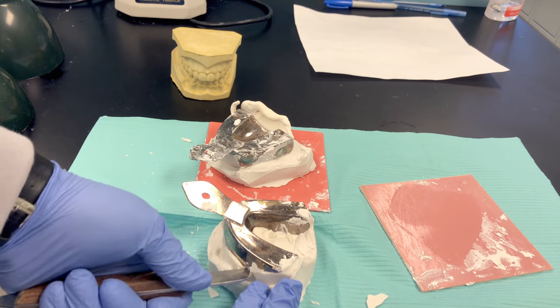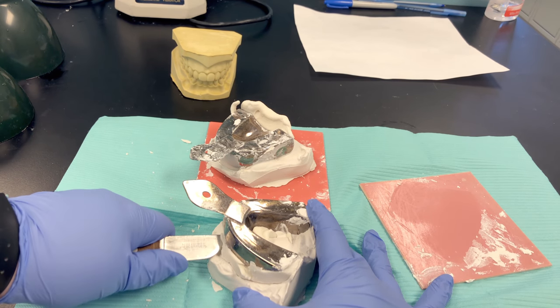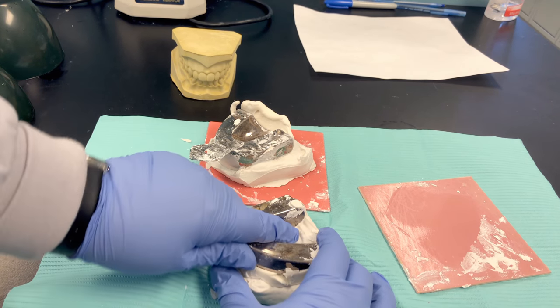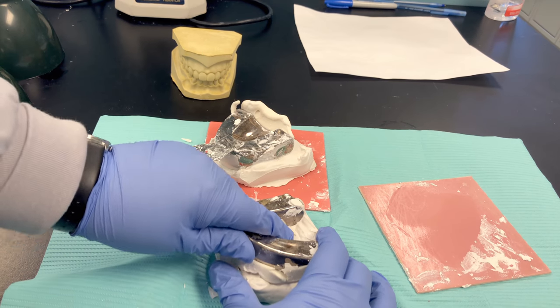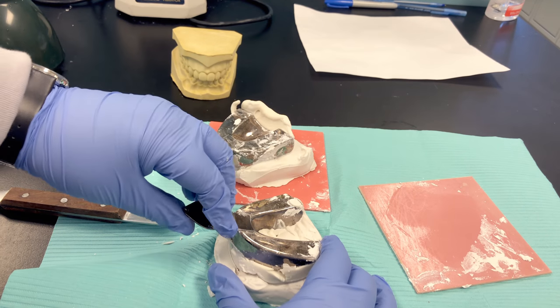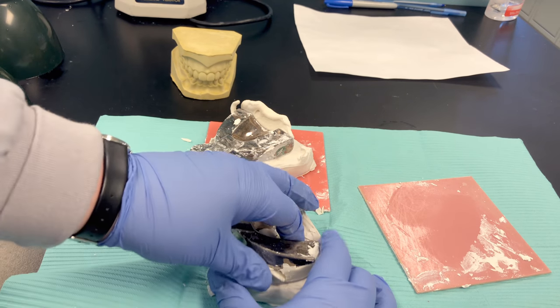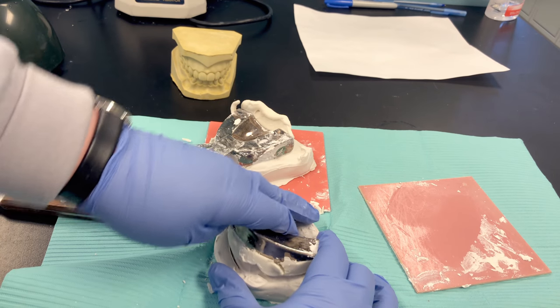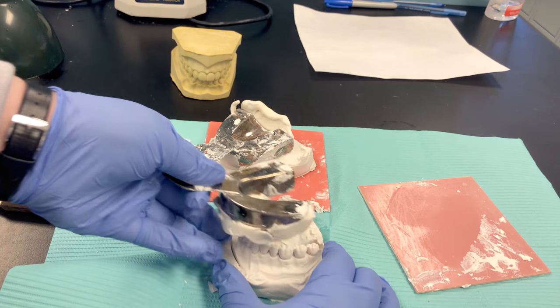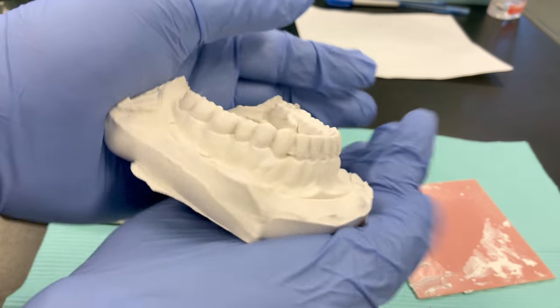Safe is to put it on the countertop, go under the tray, and give it a push up — do both sides equally. You can see that it's starting to loosen already. Once you've loosened it, try to lift up to separate. Don't try to crank the handle back — I see a lot of new assistants tilt it up, and that's how we break the anterior teeth off. Try to lift it straight up; it takes a little effort and wiggling, but lift as straight as possible.